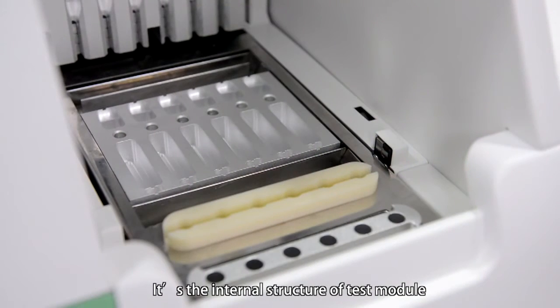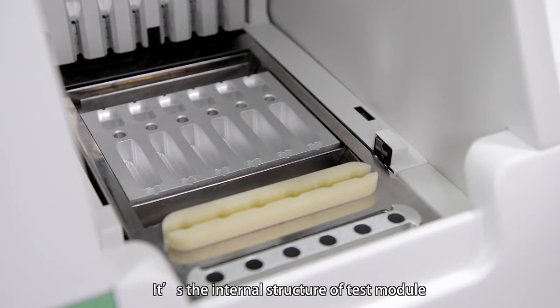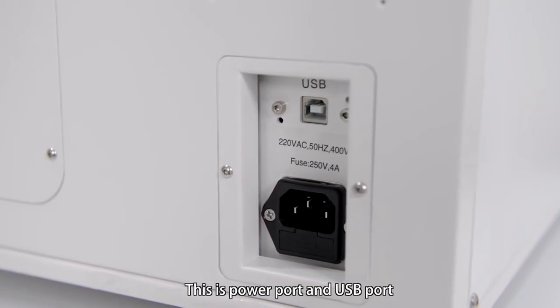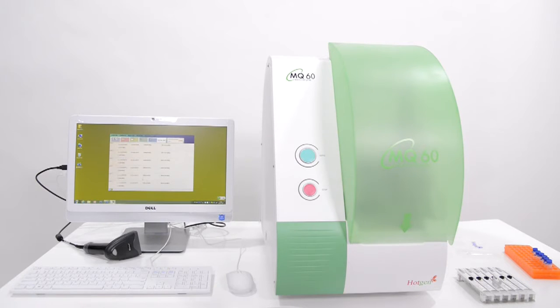This is the internal structure of the test module. This is the power port and USB port. The analyzer is equipped with a computer and scanner.